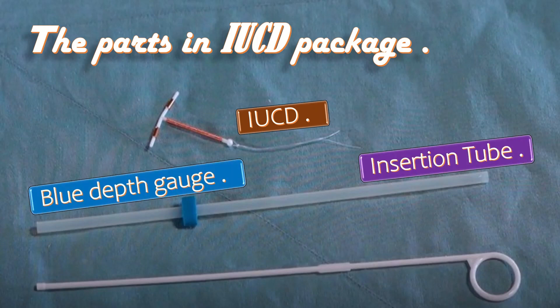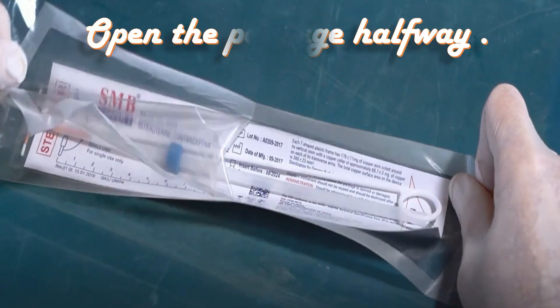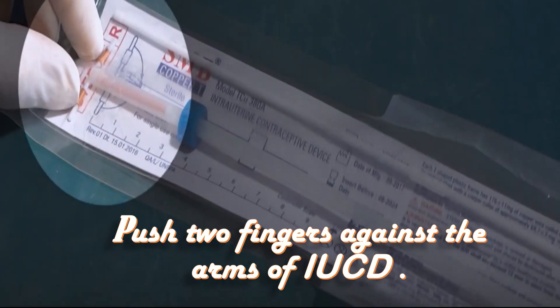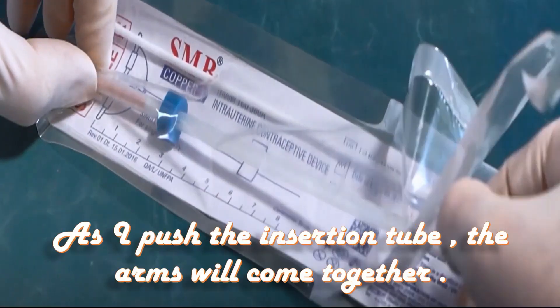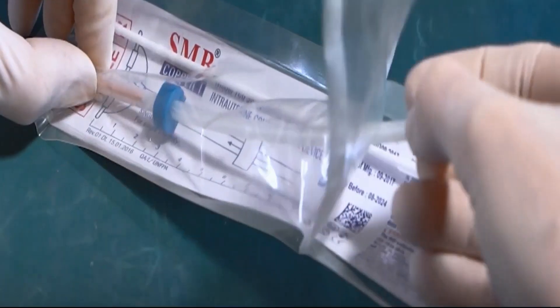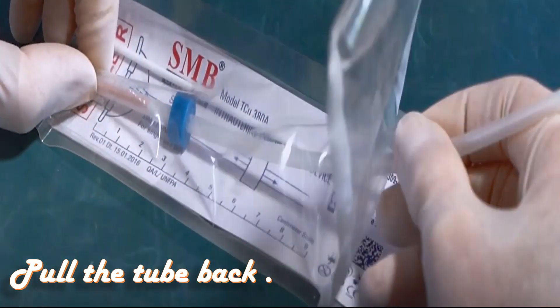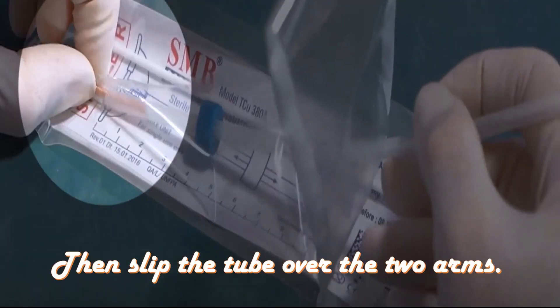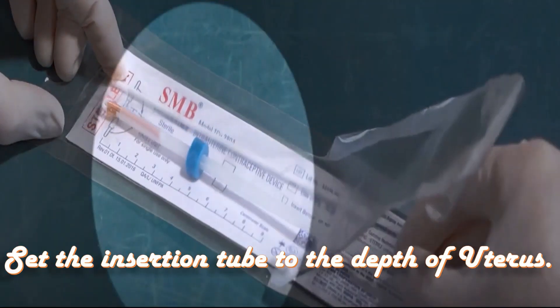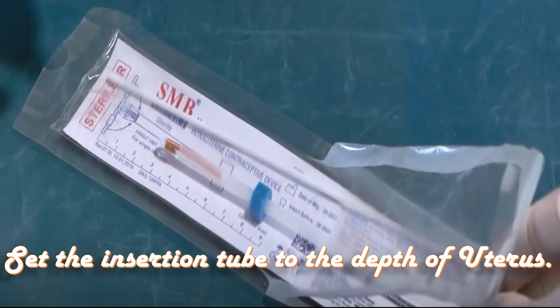The parts in the IUCD package include: the IUCD itself, the insertion tube, the blue depth gauge, and the white rod with a circular thumb grip. I will open the package halfway and push two fingers against the arms of the IUCD. As I push the insertion tube, the arms will come together. To control the tube easily, grasp it like a pencil, pull the tube back as the arms are squeezed together, then slip the tube over the two arms. Set the insertion tube to the depth of the uterus using the measuring strip in the package and bring the blue gauge to the appropriate size.